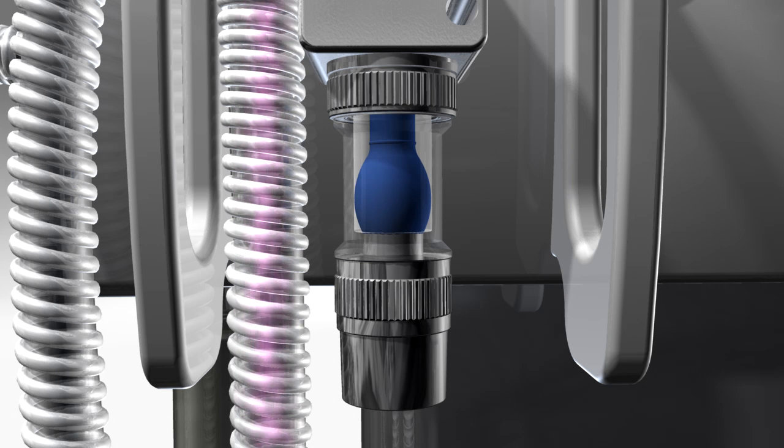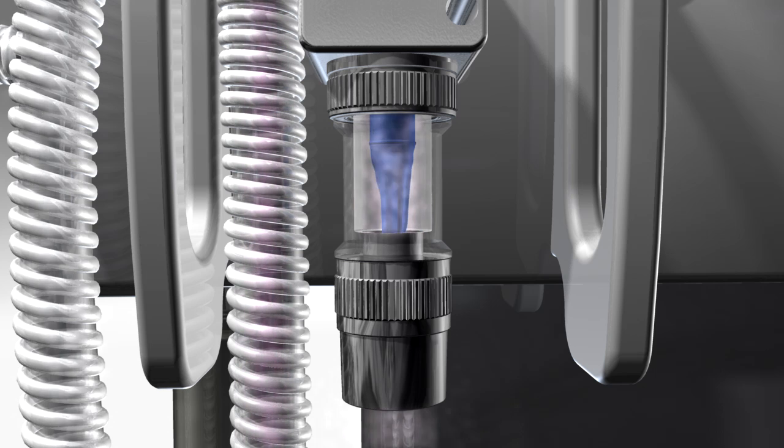During expiration, the balloon empties and opens the exit port, allowing exhaled breath to flow out through a final one-way valve to a scavenging device.